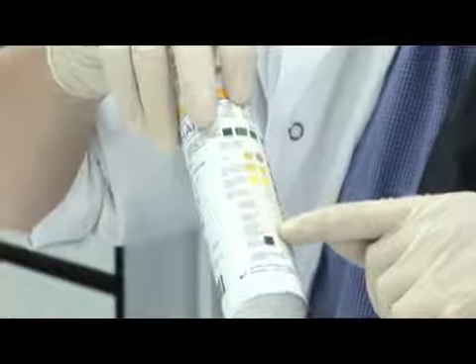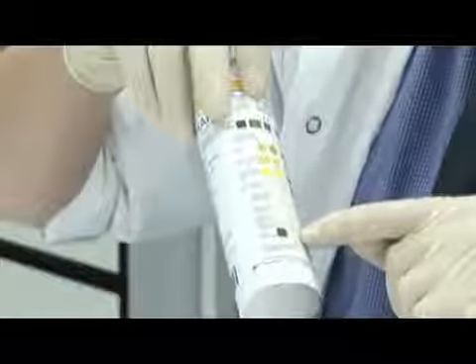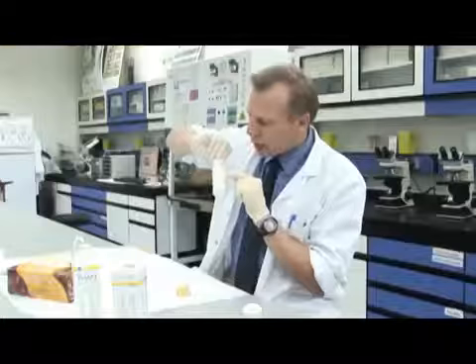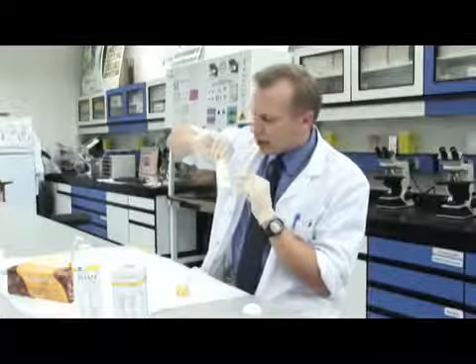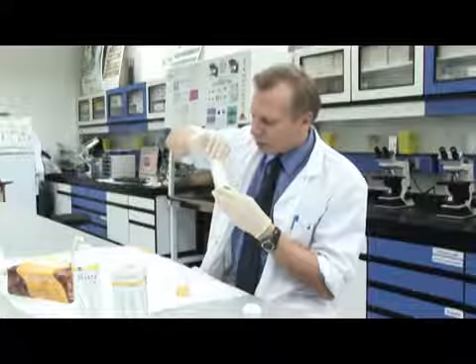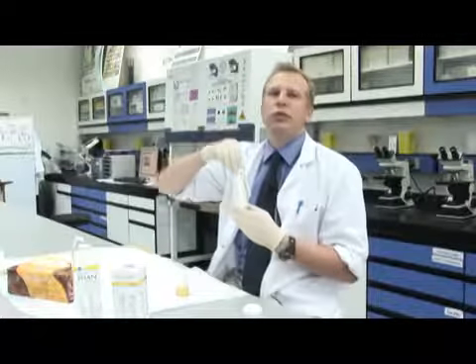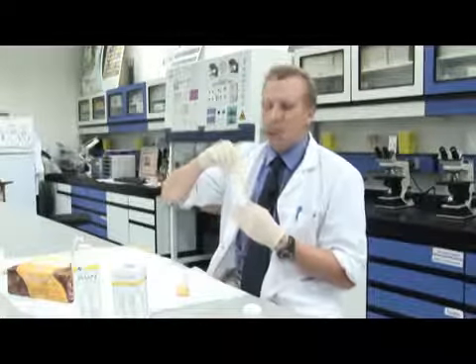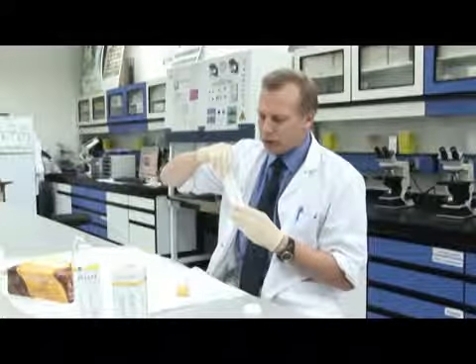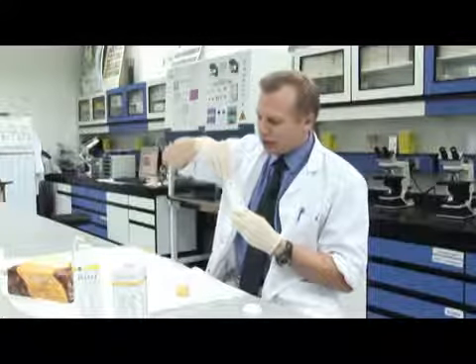I think everything else is normal. That's a nice pale green, a normal pH for urine. Glucose is normal, ketones are normal, and we have other tests, urobilinogen and bilirubin, which are used for liver function, and leukocytes are normal. So in this case, this person has some bleeding into the urine, but they don't seem to have infection or diabetes. You might do some more tests on them to see where the bleeding is coming from, but it just gives an initial indication.